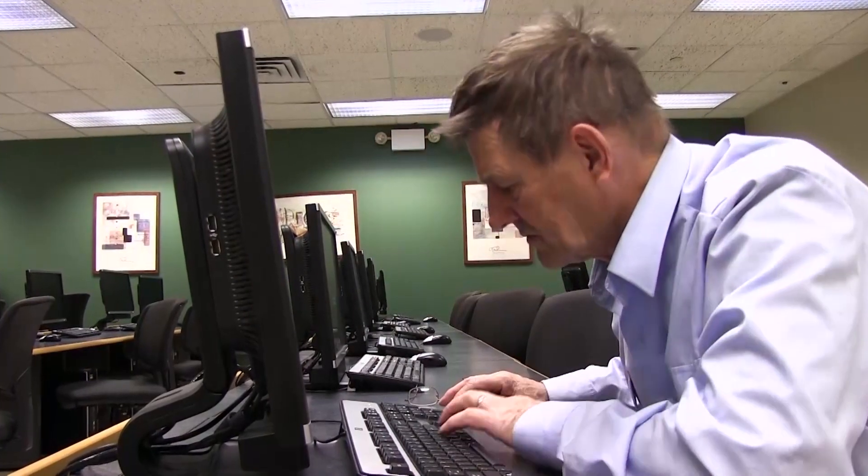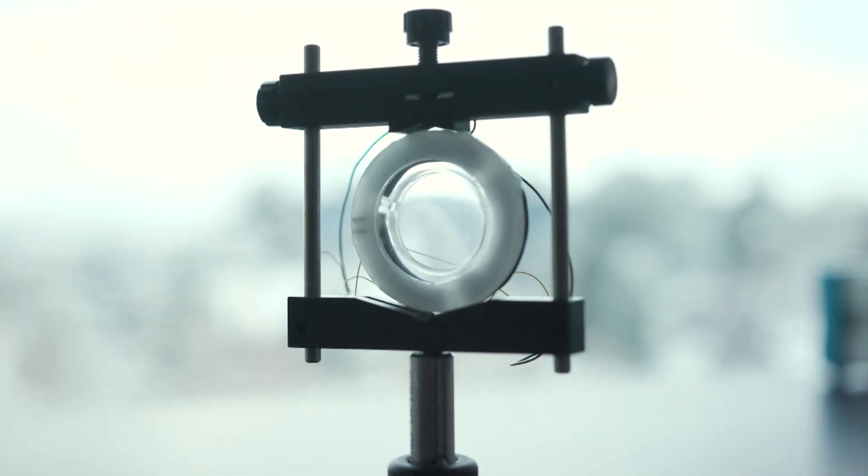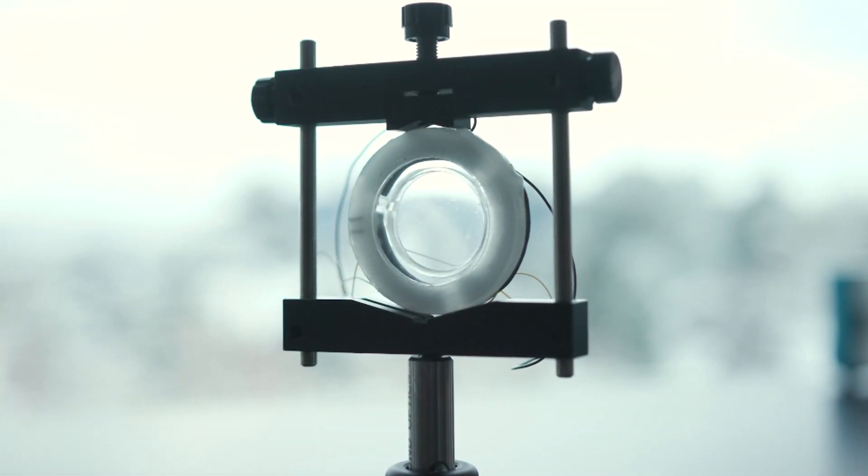It's a condition called presbyopia, and one professor of electrical engineering is working on a solution to correct it.